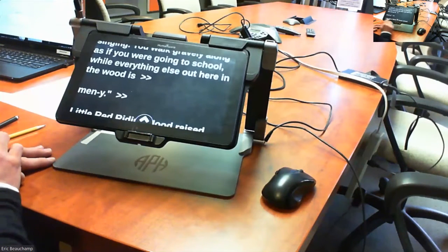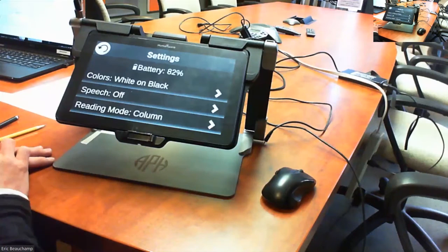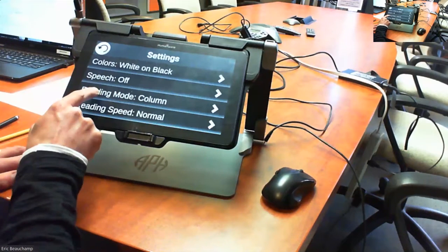How do you set the column mode? Good question. Go into your button banner, go into settings, and you'll have reading mode on here.